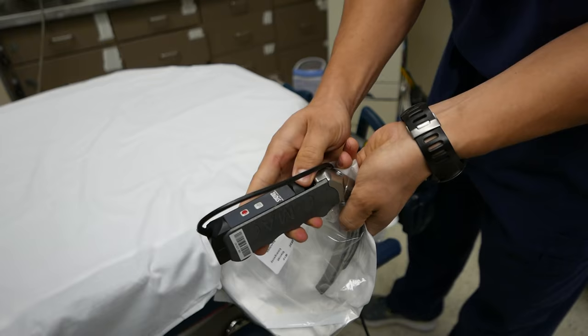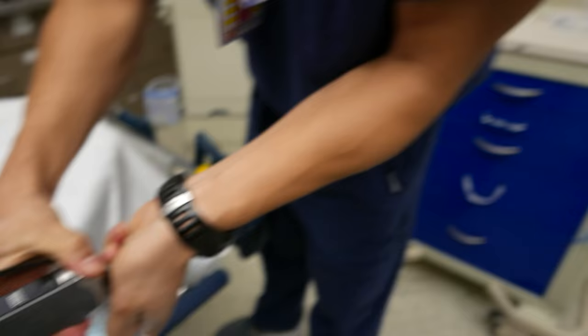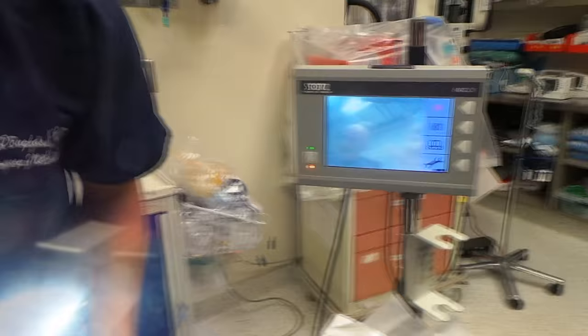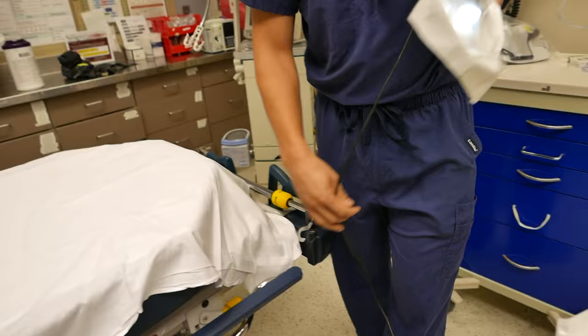You'll see down here that little silver portion is the connector for the camera. So as this slides in, it'll get powered and you'll get good video there, and we'll take a video to see as we got the cameras going. That gives us the connection there.